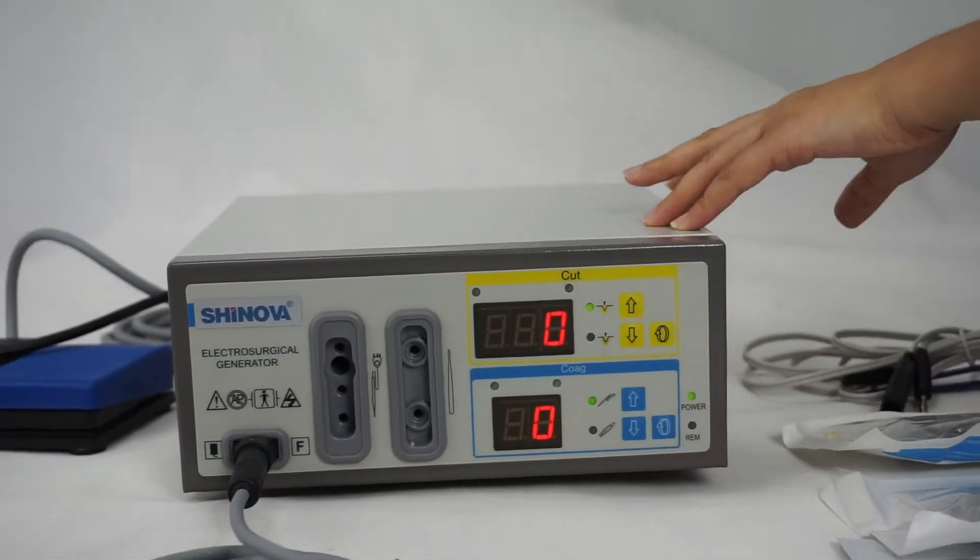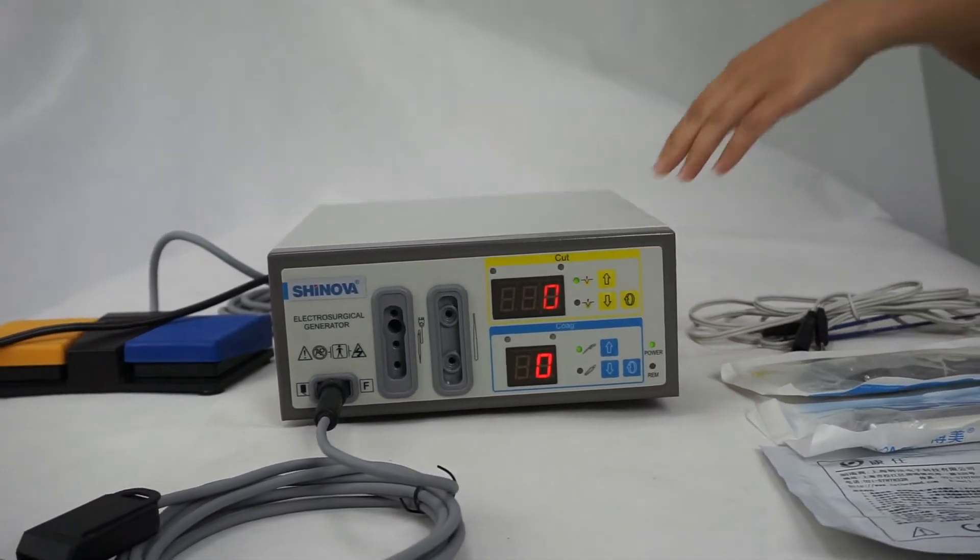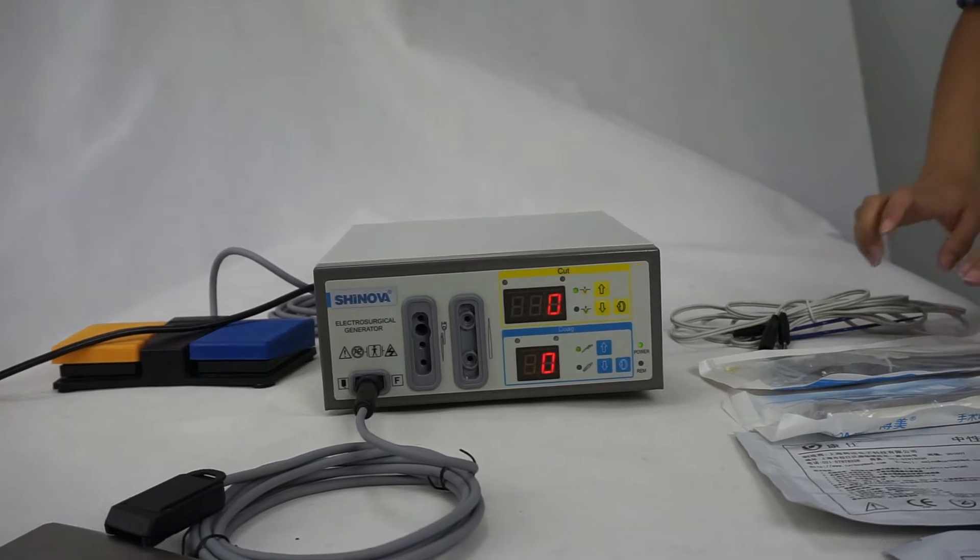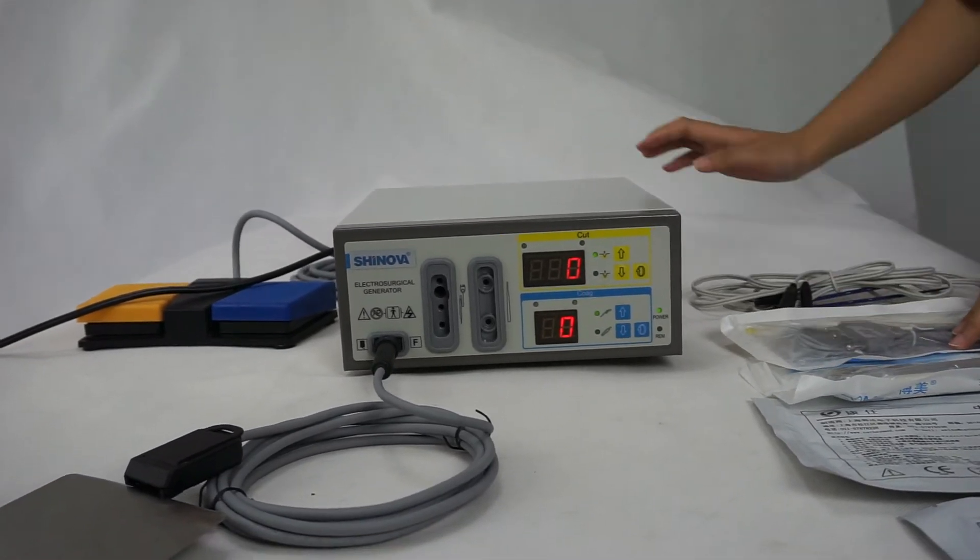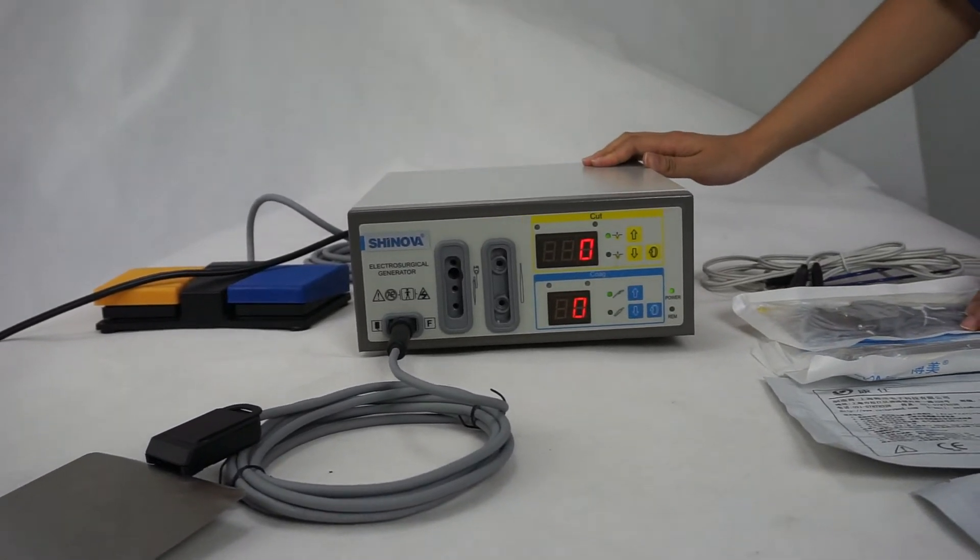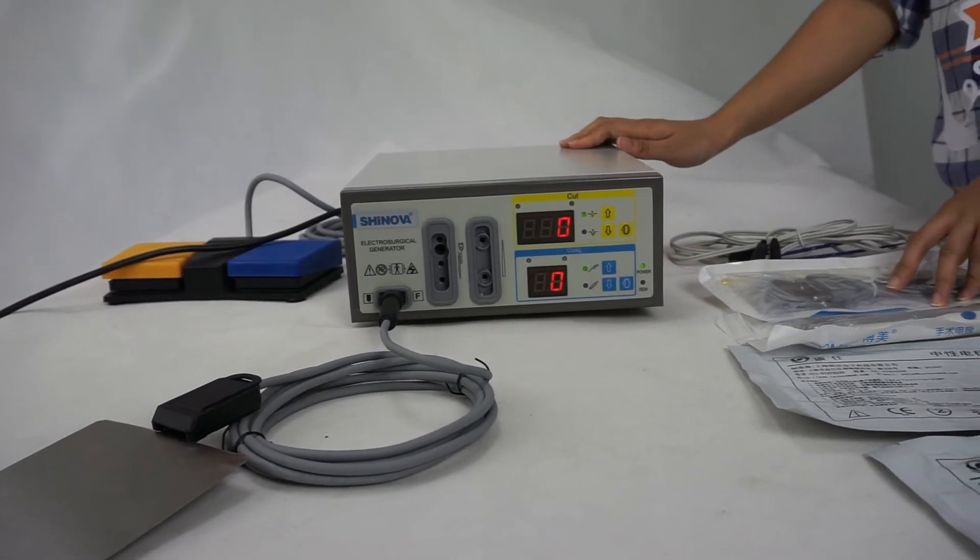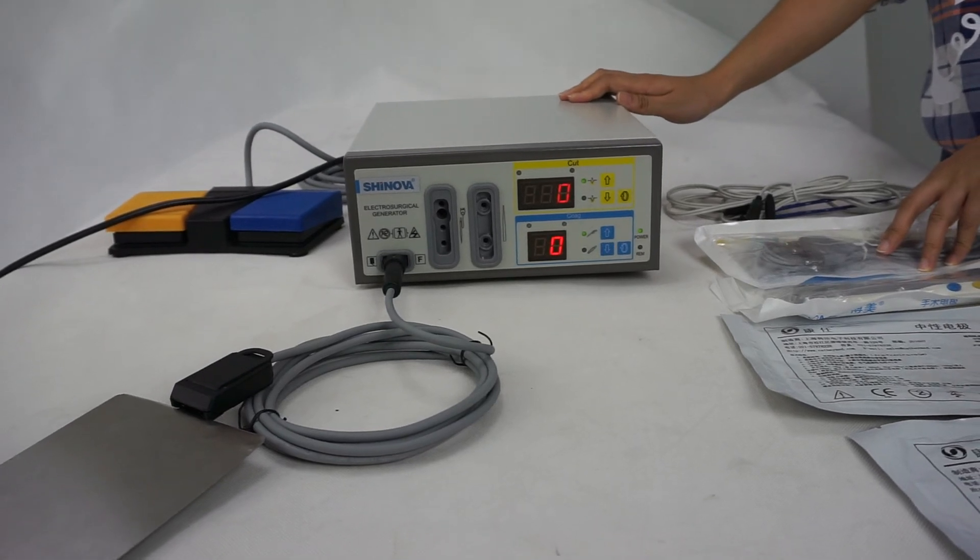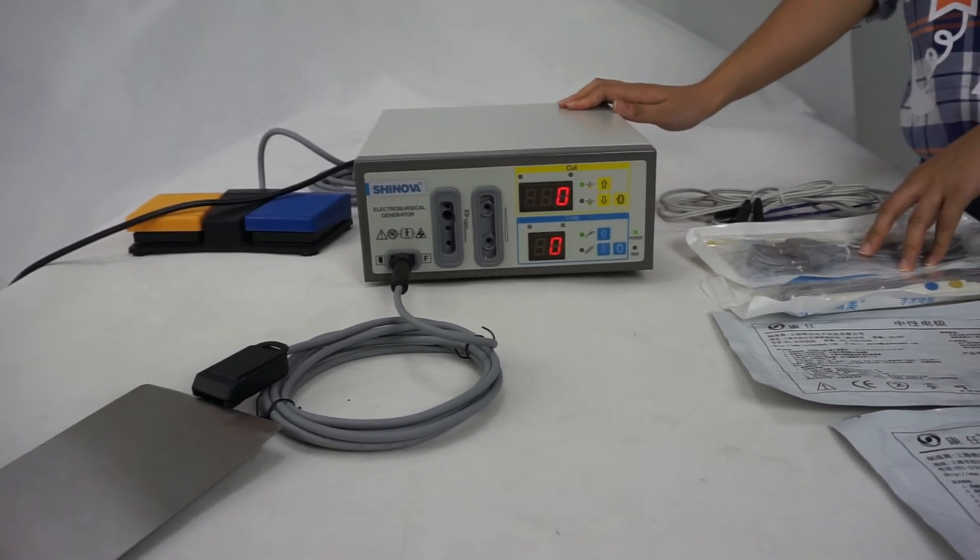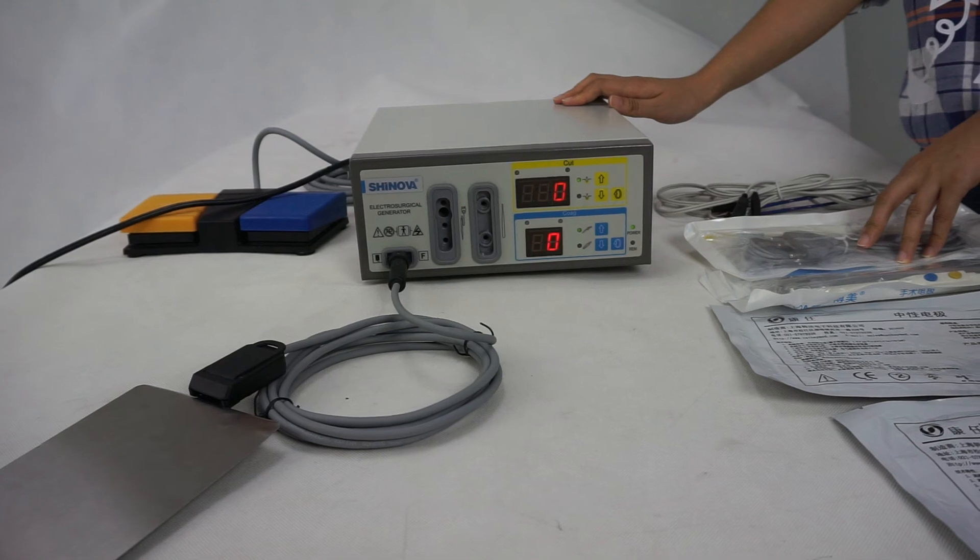This machine is very easy. If you have more information about this machine, you can leave a message on our website. Our website is www.shinova.com Thank you.